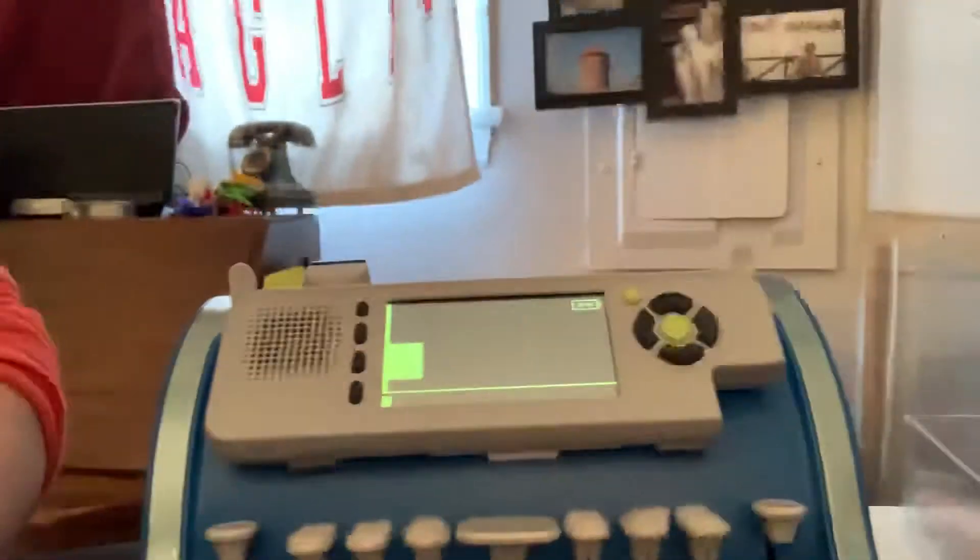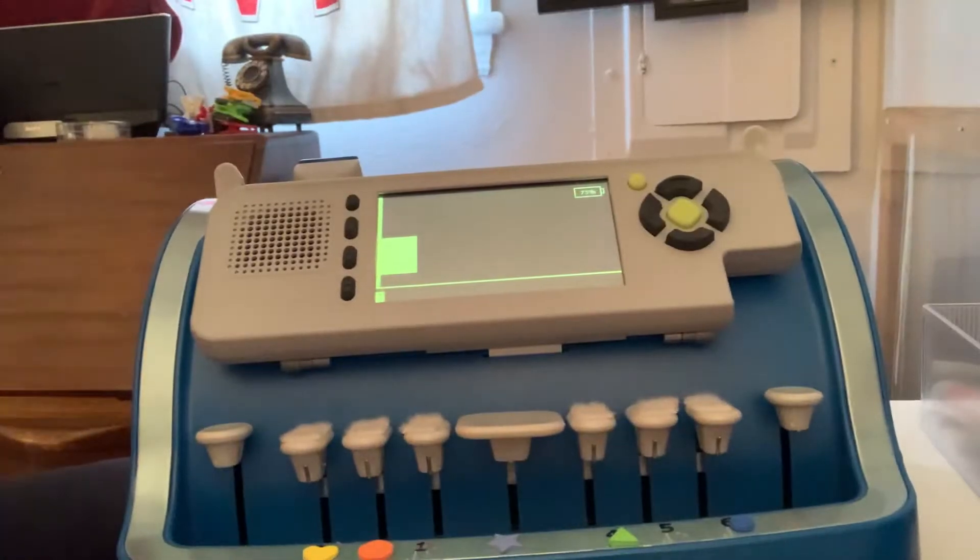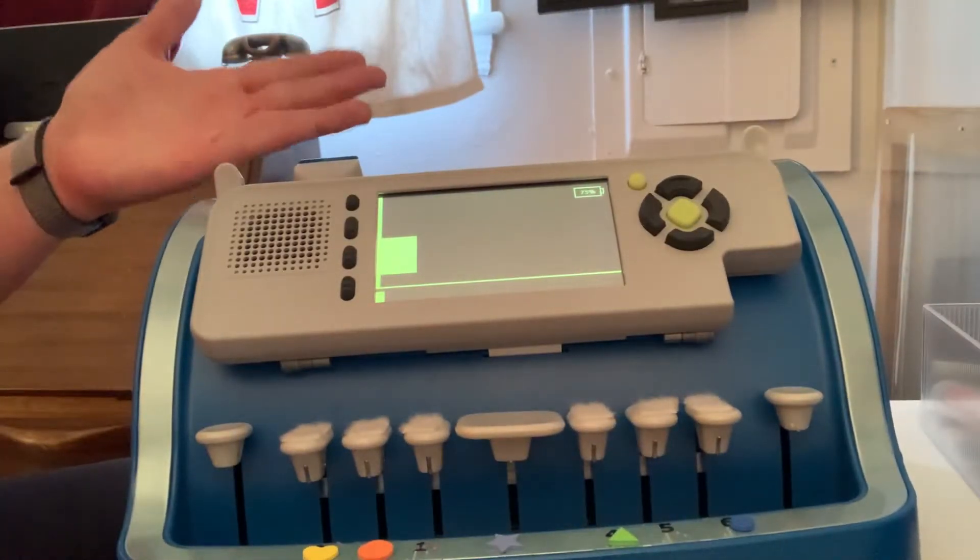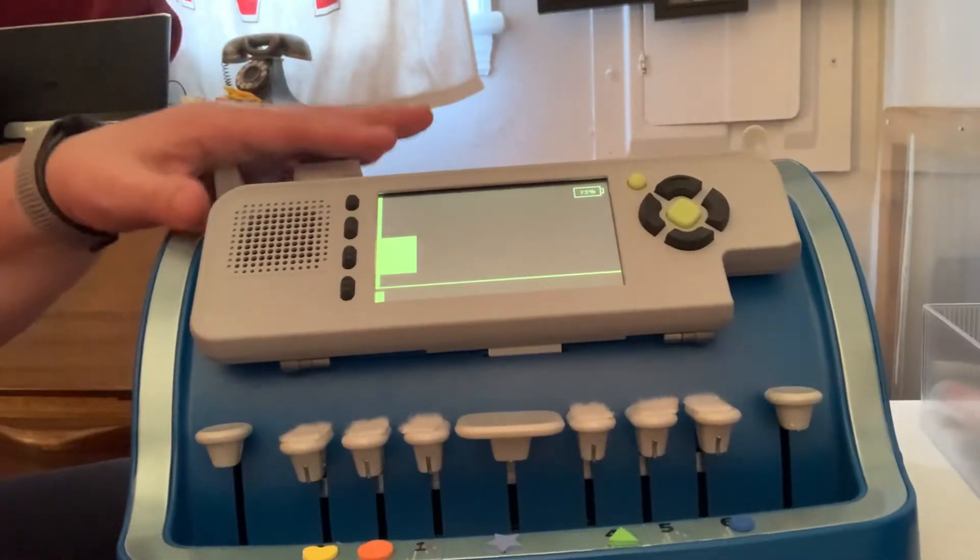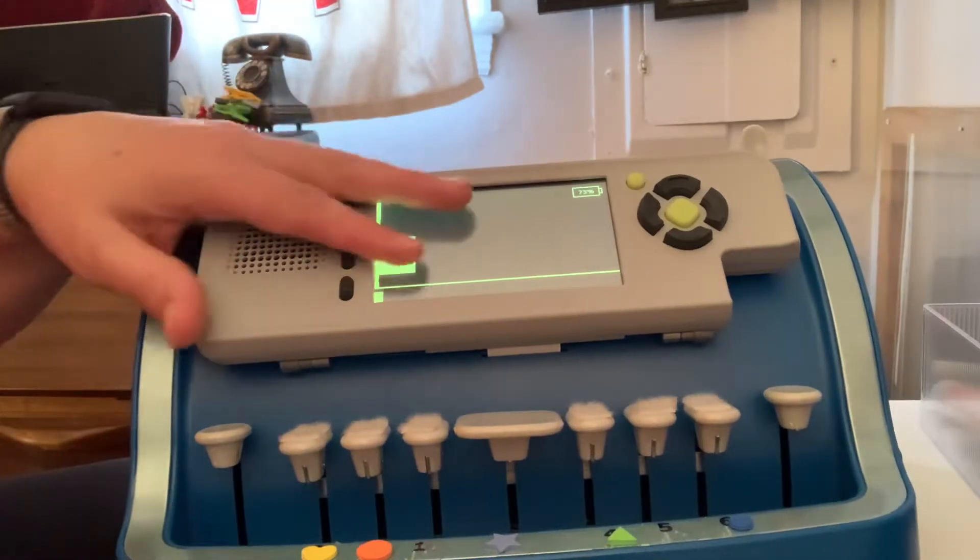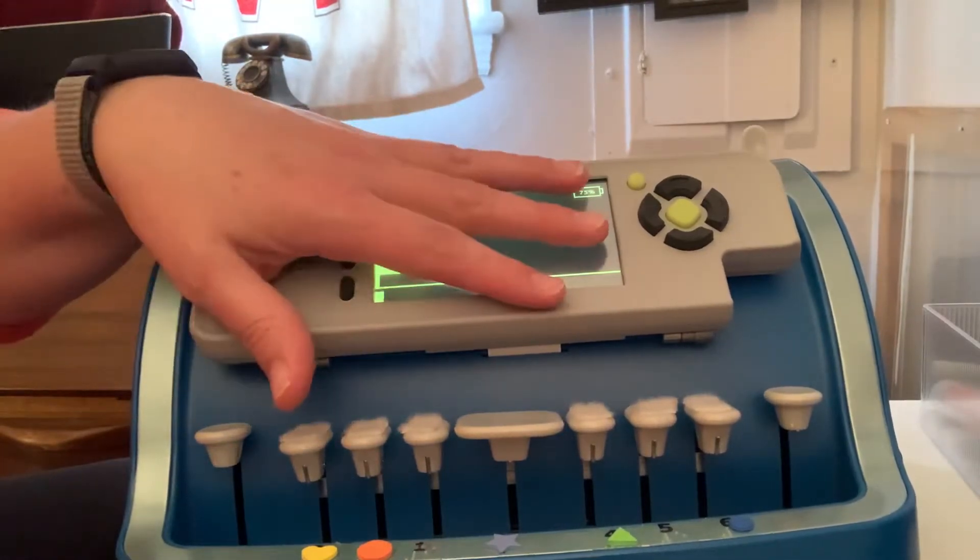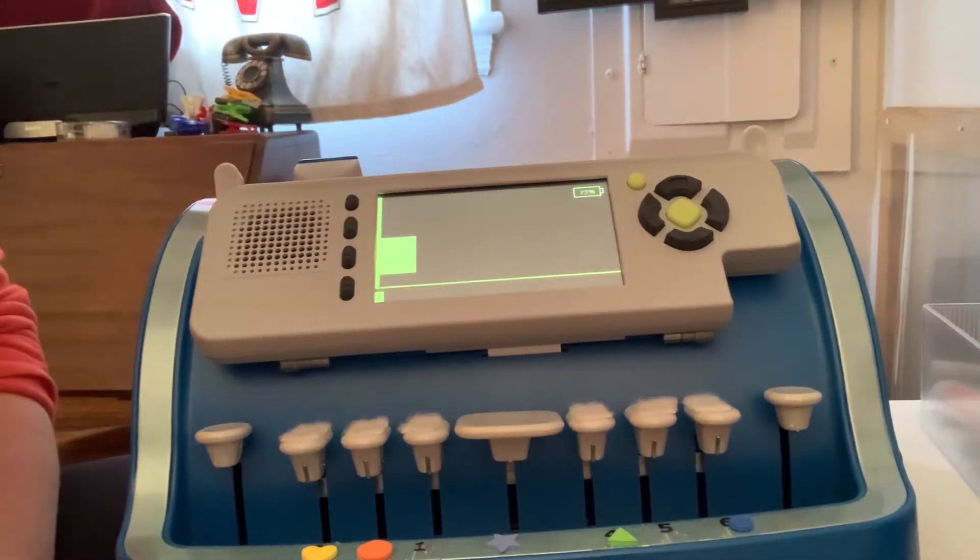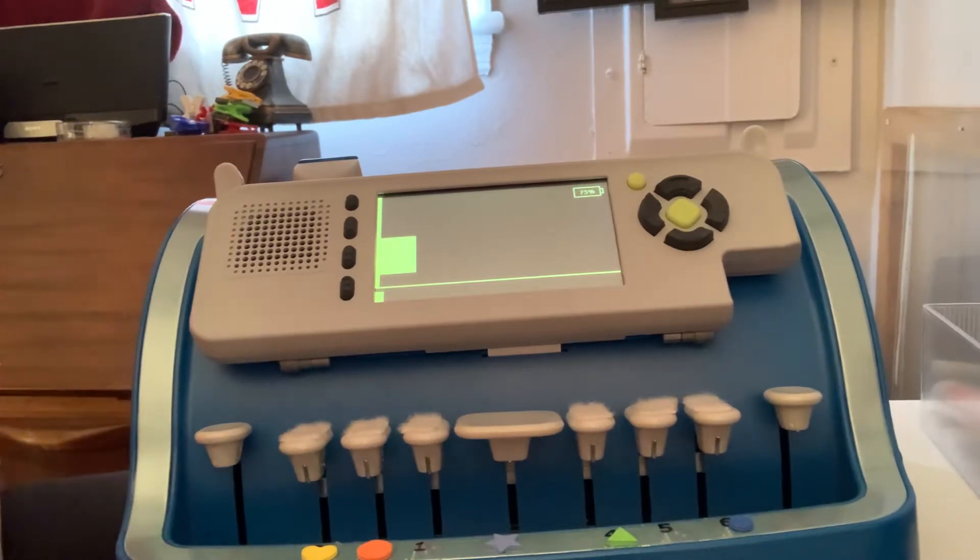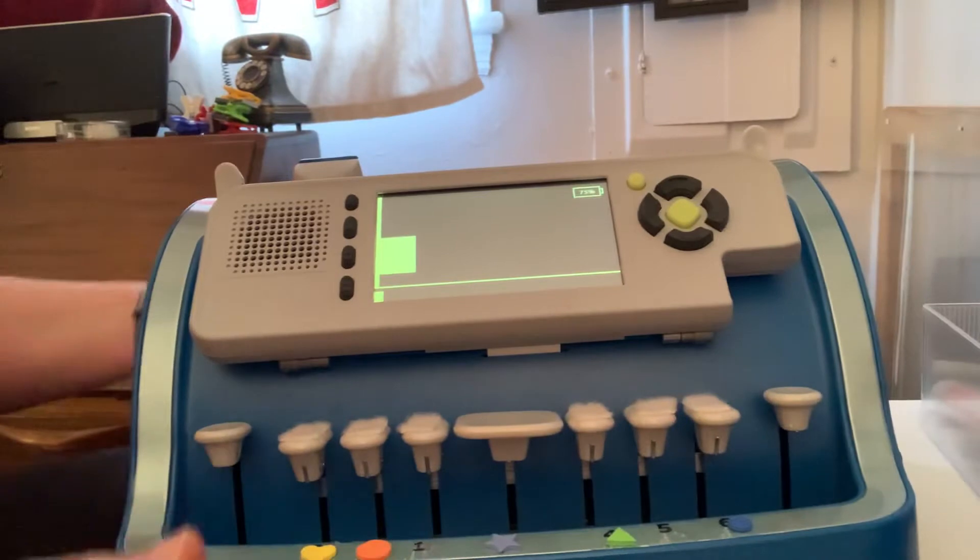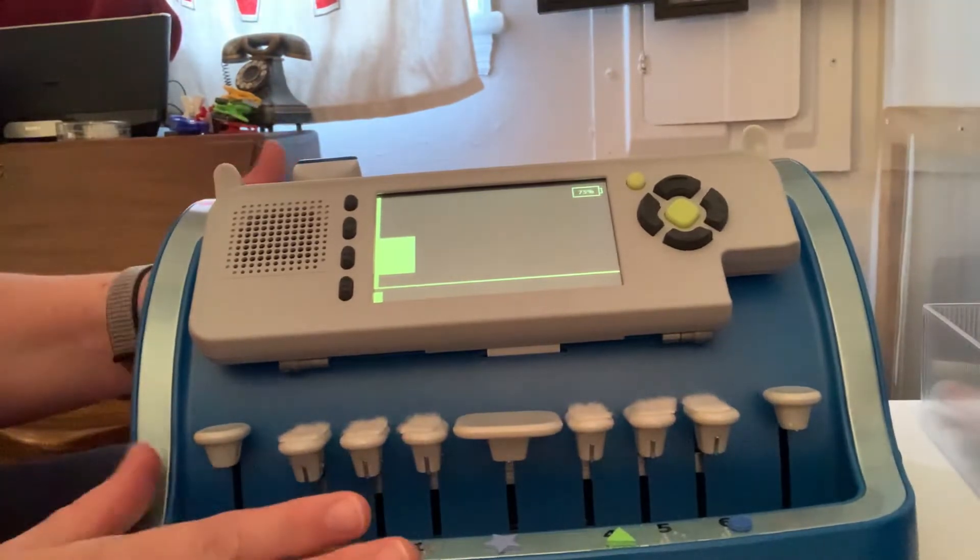Here we go. I'll put this so you can see the Brailler itself. This is a Brailler that has many different functions, a nicer version of the old-fashioned clanky one that Sammy has. It's lighter, a lot lighter—not terribly light, but still lighter than her other one.